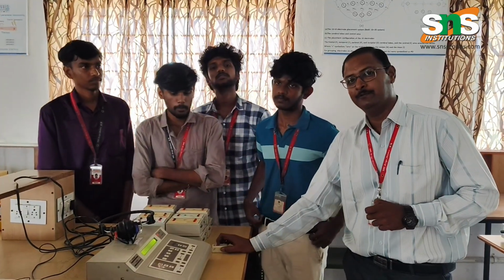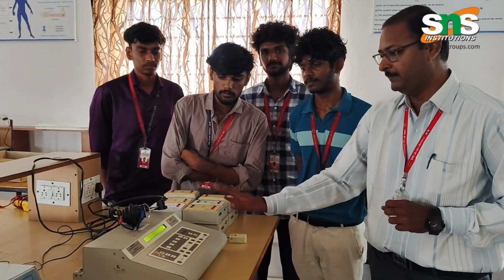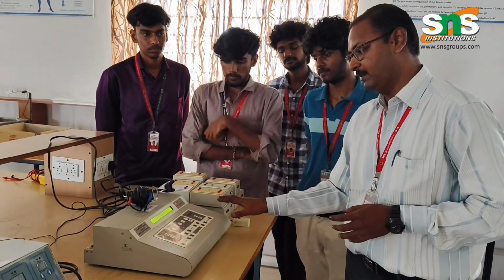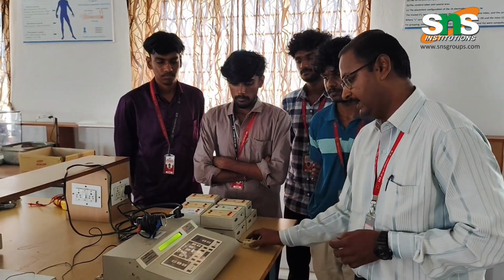Good morning all, I welcome you to the case study video of this particular equipment, which is called an audiometer. With this audiometer we are going to discuss what functions are available and how to conduct an air conduction audiometry test on a patient.